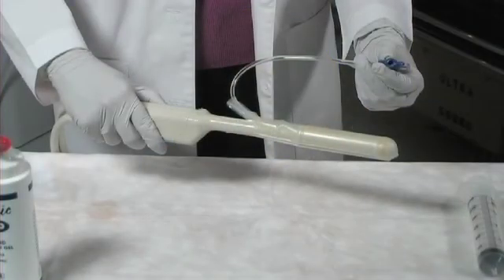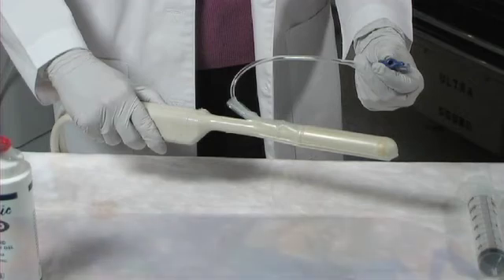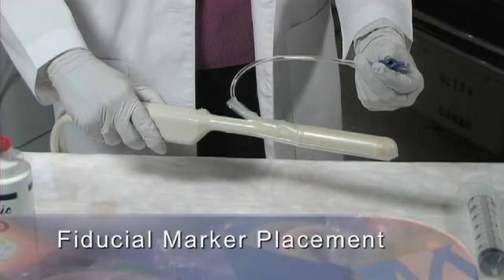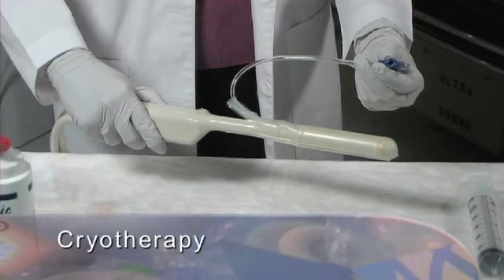An alternative covering method for transrectal procedures may involve use of an endocavitary balloon. This transducer standoff device is an alternative example of how to perform scanning and transperineal procedures for needle guidance, core biopsy, fiducial marker placement, brachytherapy, or cryotherapy.